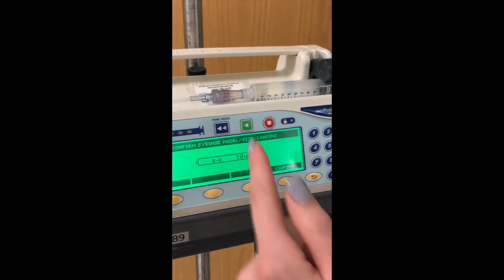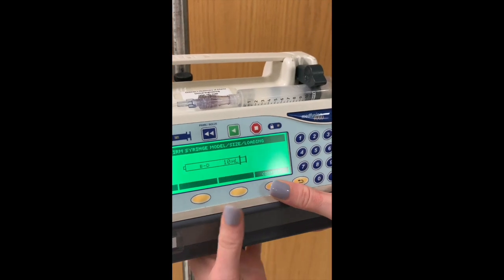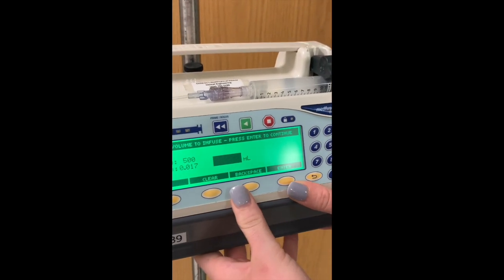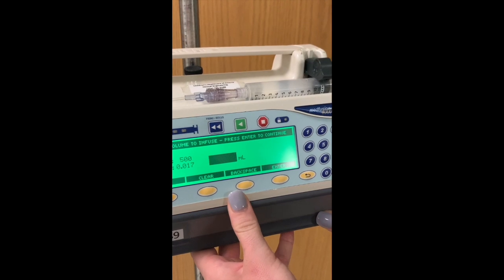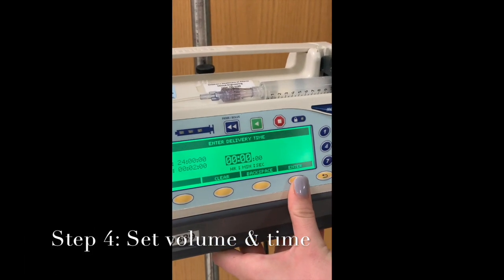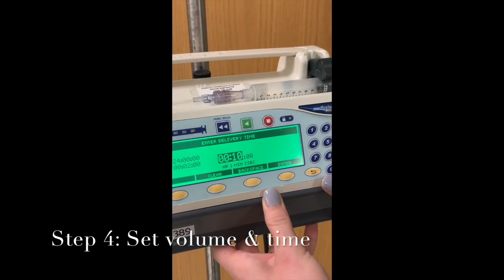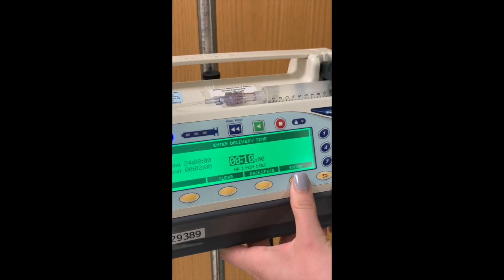It confirms the syringe size, so if this was a bigger syringe, like a 60 mL syringe, for example, it would confirm that. It can tell based on the height and the length right here. It'll ask me how many mLs I want to administer, so for this, I'll just say 8. And how quickly do I want to administer that? So let's say we're gonna go over 10 minutes. It would be whatever the doctor ordered.